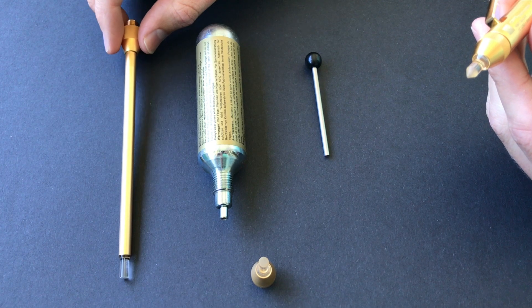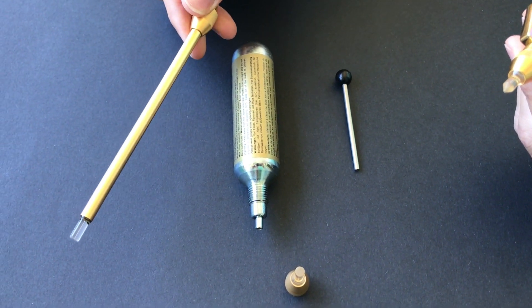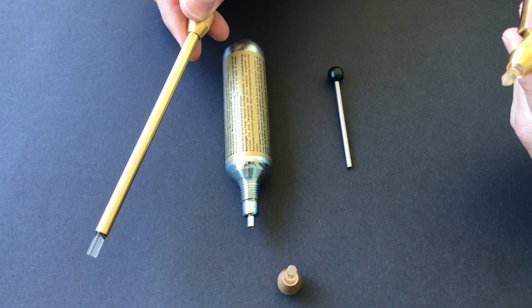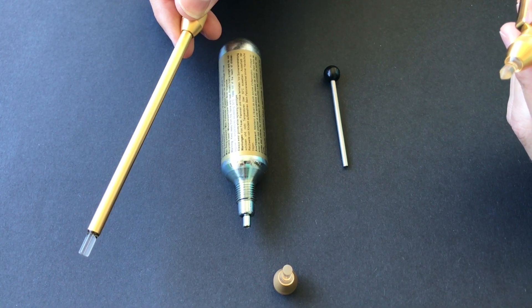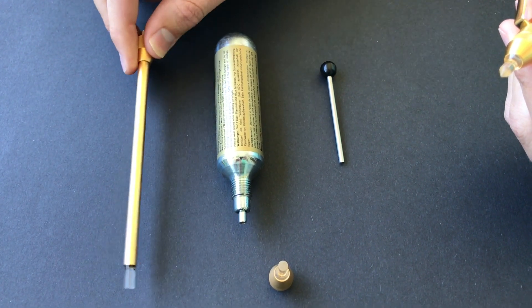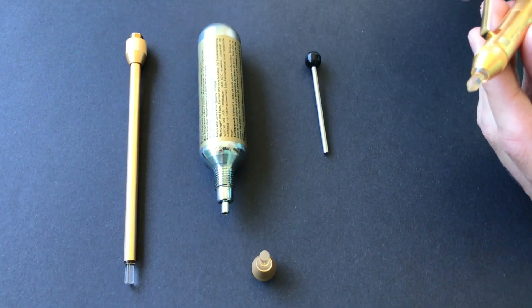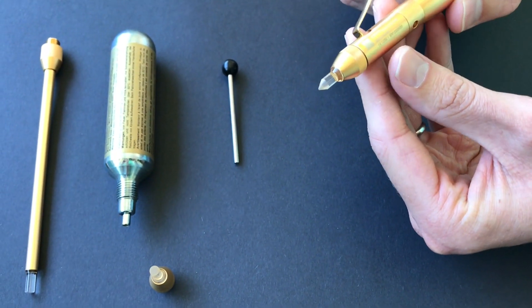There is also another product that can be applied to the end of the cryo success which can be used for gynecological procedures with lesions affecting the cervix and vaginal walls. But today I'll be using the one millimeter tip on the cryotherapy unit.